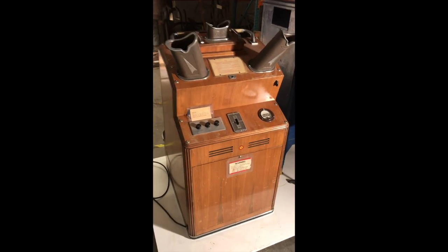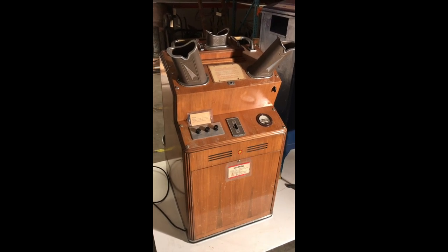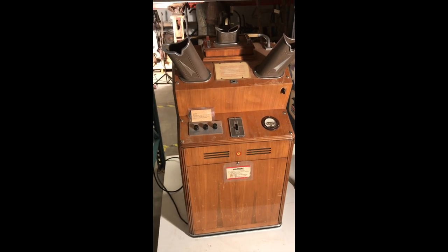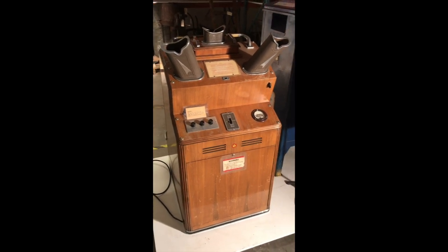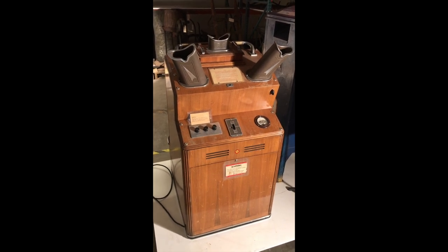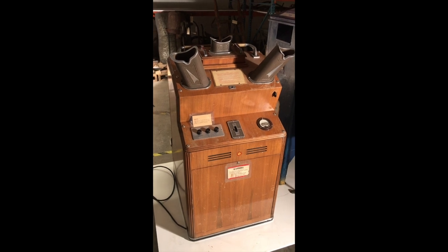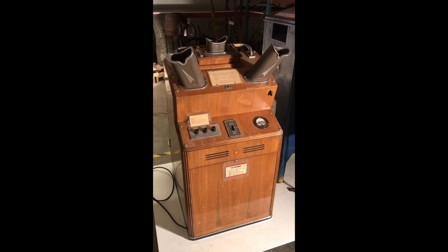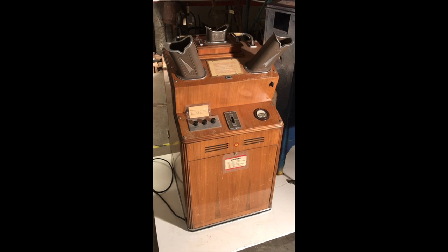What is a shoe fitting fluoroscope? Fluoroscopes are different from x-ray machines, though they still operate on roughly the same principle. With a standard x-ray you get a snapshot of x-rays passing through part of your body at a single moment in time. With a fluoroscope, you can actually move the body part being imaged — let's say your hand — while it's being bombarded by x-rays, and you can see your finger bones moving during the process in real time.